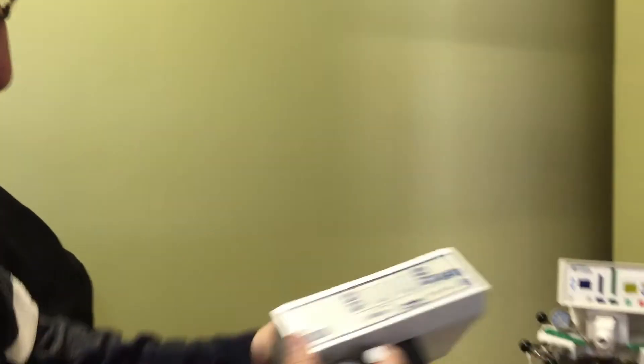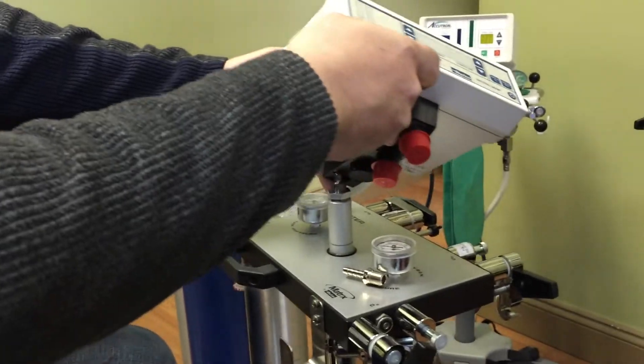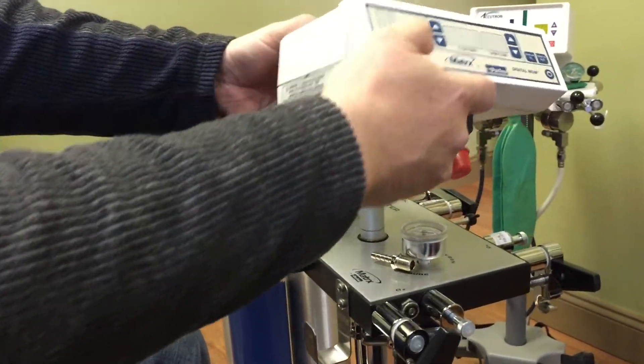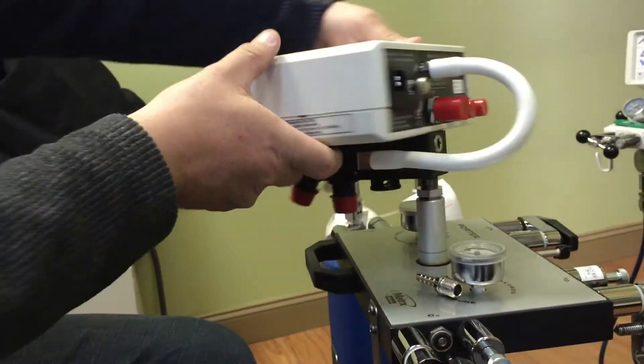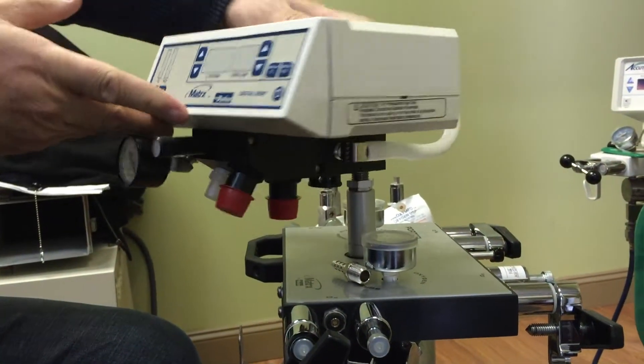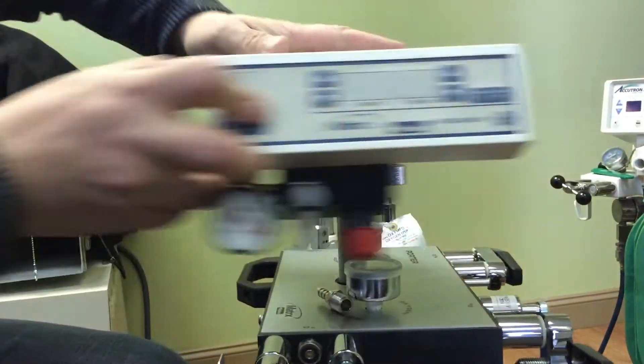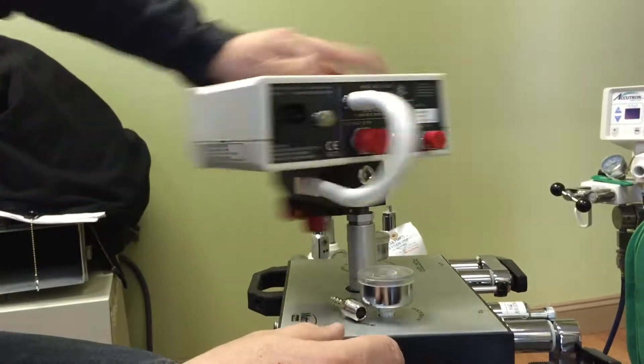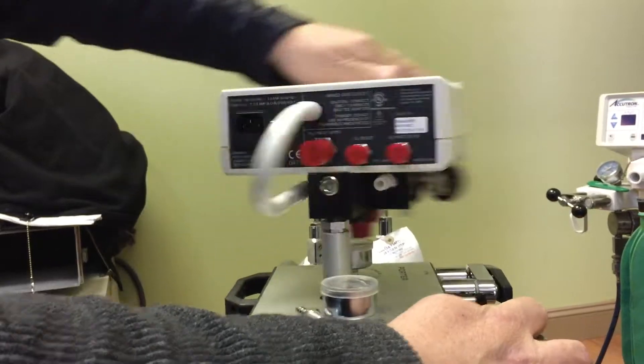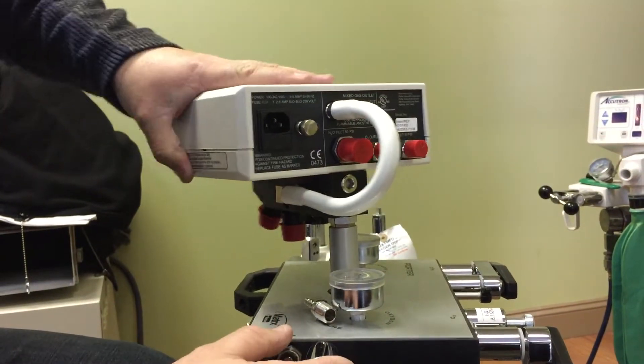So now you just take this thing, line that up and just screw that right down on top of the stand. Screw that thing in nice and snug. There you go.